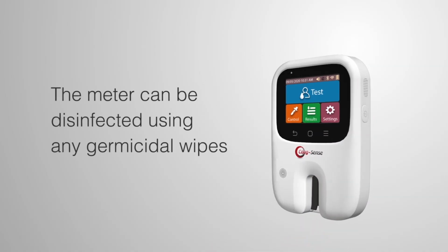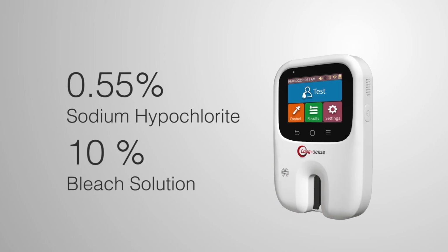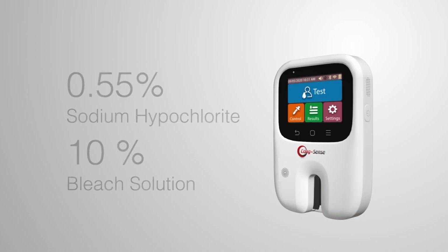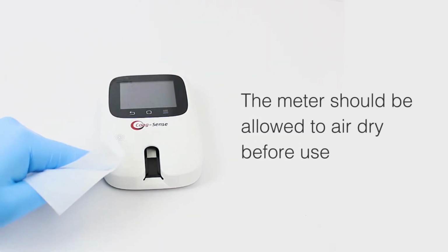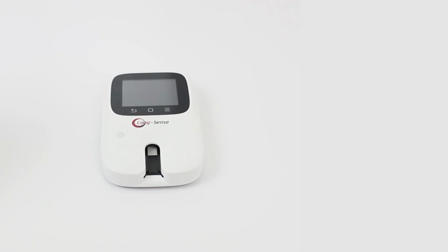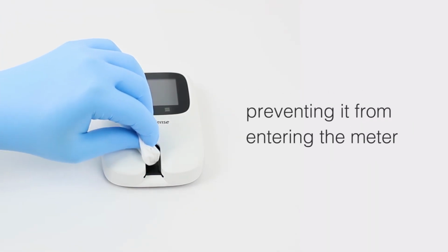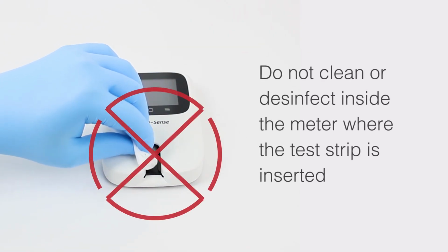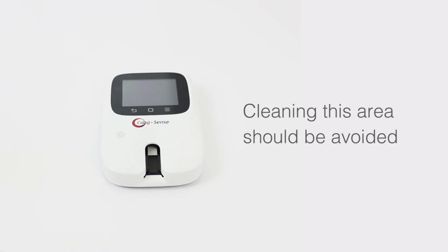The meter can be disinfected using any germicidal wipes that have 0.55% sodium hypochlorite or 10% bleach solution with a 1-minute contact time. The meter should be allowed to air dry before use. The test strip is designed to contain the patient's sample, preventing it from entering the meter. Do not clean or disinfect inside the meter where the test strip is inserted. Cleaning this area should be avoided.